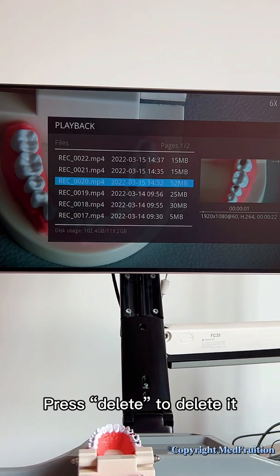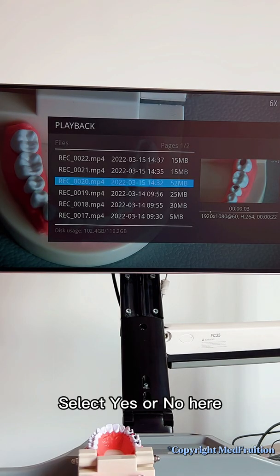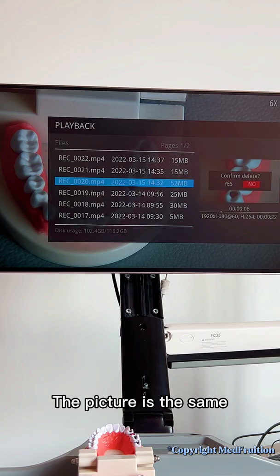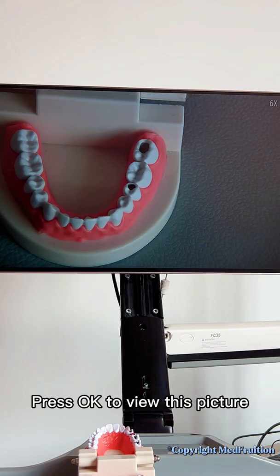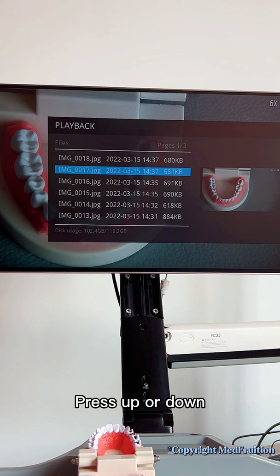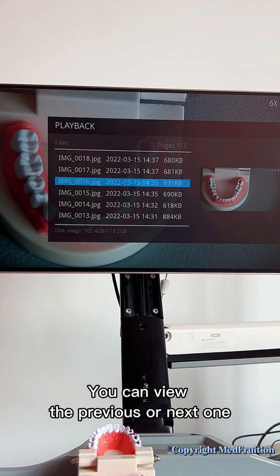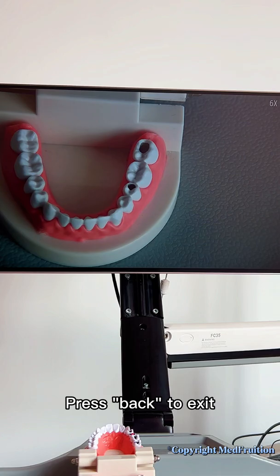Press delete to delete it, then select yes or no. The picture function is the same. Press OK to view a picture. Press up or down to view the previous or next one. Press back to exit.